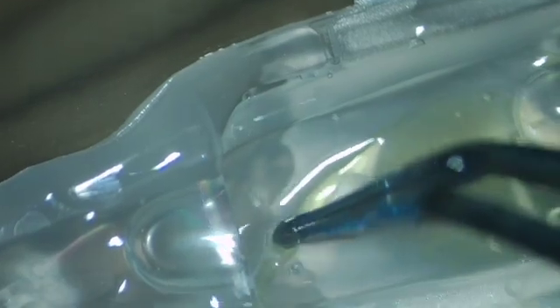By opening this chamber, we can retract the plunger, retract the IOL, reposition the haptics in the direction we want, and then gently close the IOL chamber.